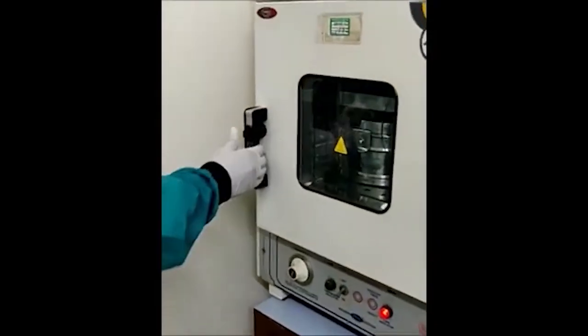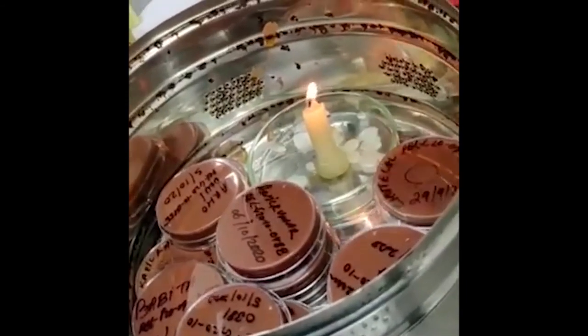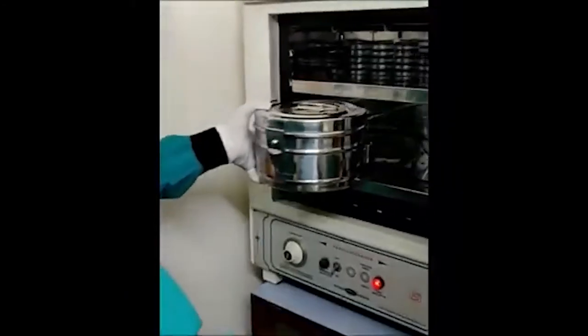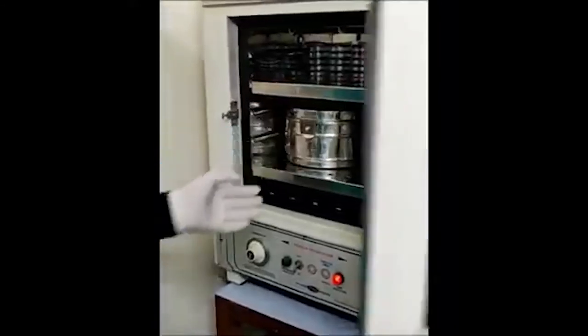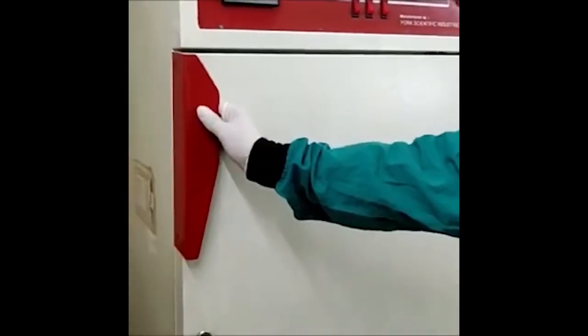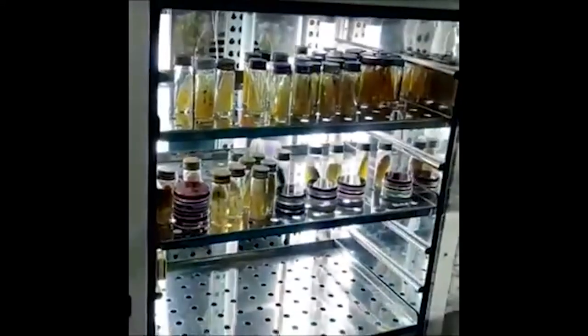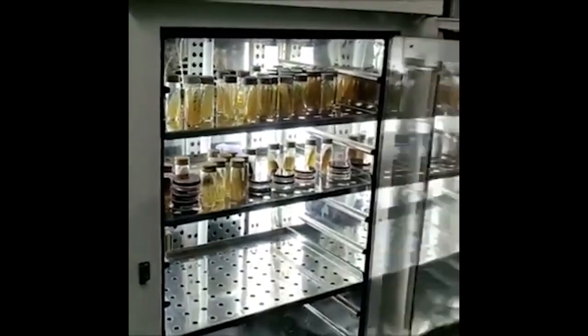Blood agar is incubated in the incubator set at 37 degrees Celsius. Chocolate agar is kept in a candle jar which is also incubated at 37 degrees Celsius. The growth on all media is evaluated from the next day onwards every day in the morning for 14 to 21 days depending on the media. All media except for SDA are incubated at 37 degrees Celsius; SDA is incubated at 26 degrees Celsius and the growth is evaluated from the next day onwards for a period of 21 days.